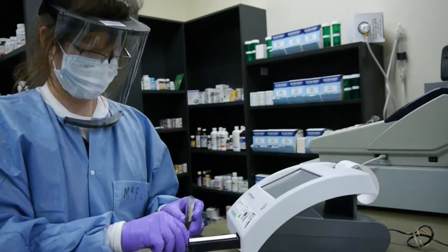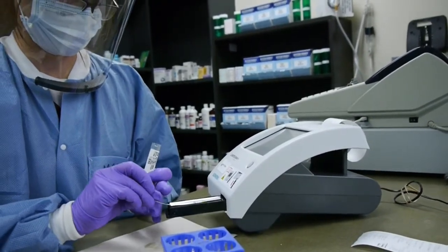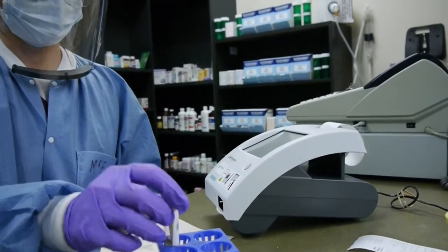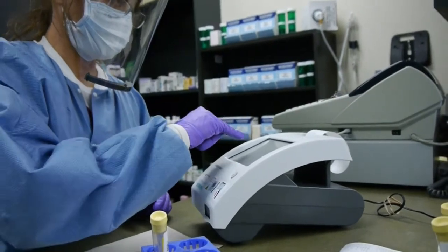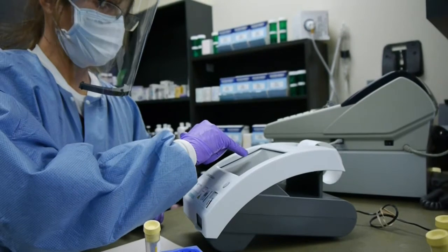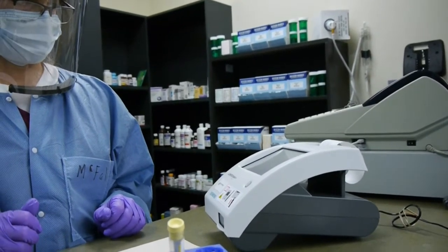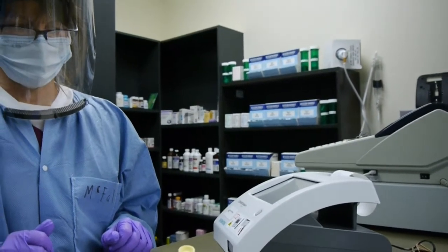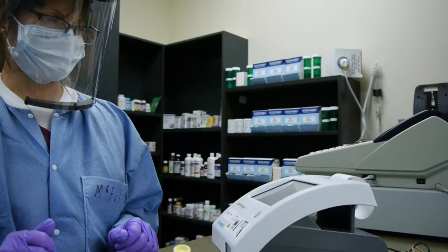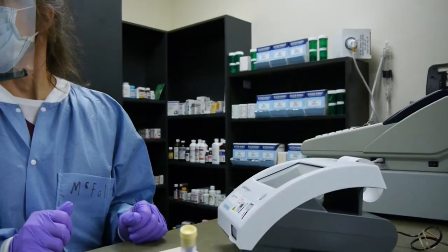Now we're doing our patient. Start, dip, blot — put it on that tray. The analyzer brings it in. Now it's asking for color. Yellow. And clarity — slightly cloudy. That's already information that will get printed out. The analyzer does store different patients and different information, so if this patient is in our facility over a number of days, we can bring up their information and it will keep track of how they may be doing. That's true of any analyzer.